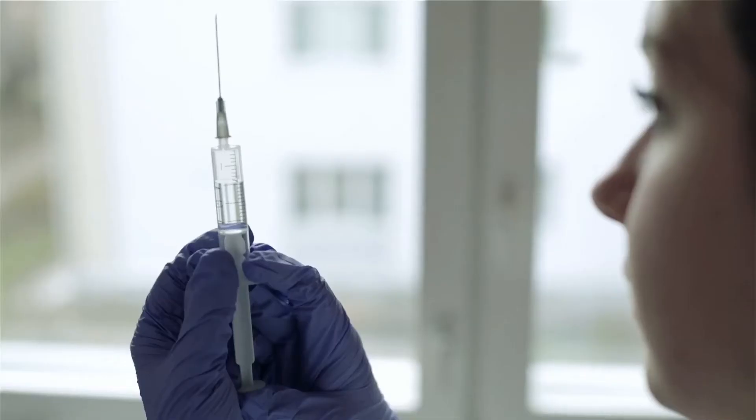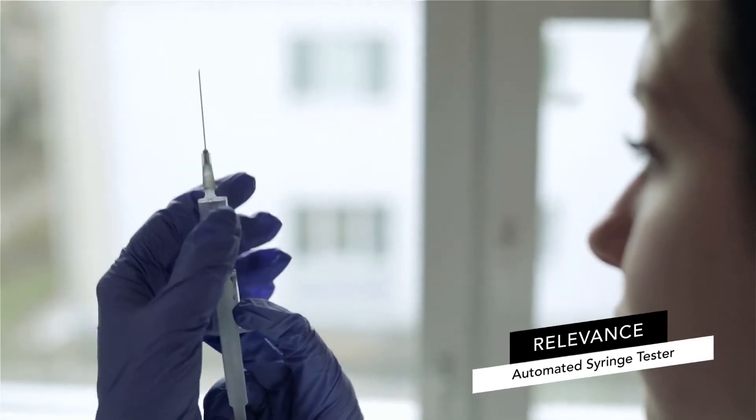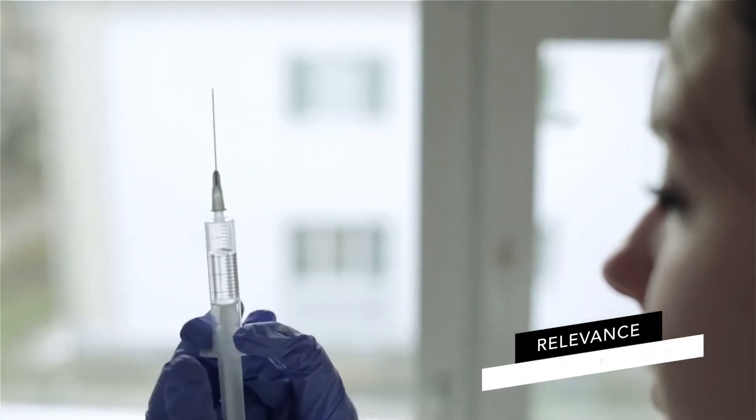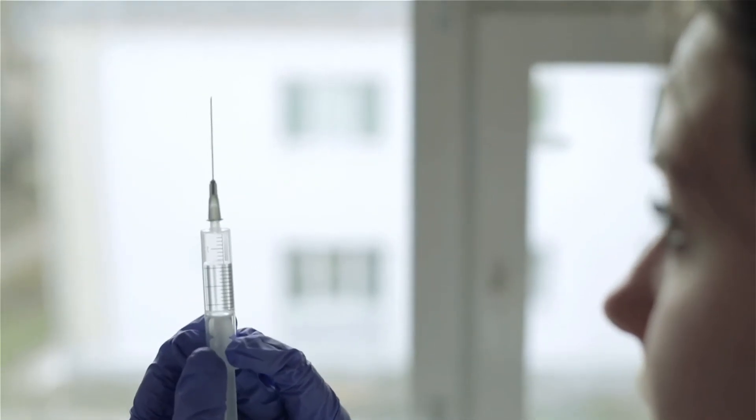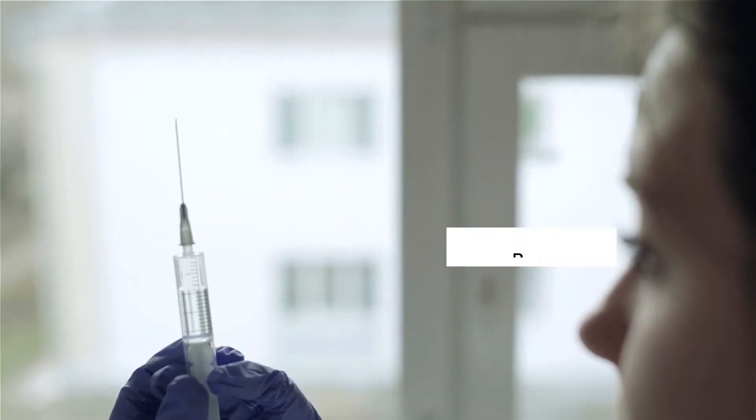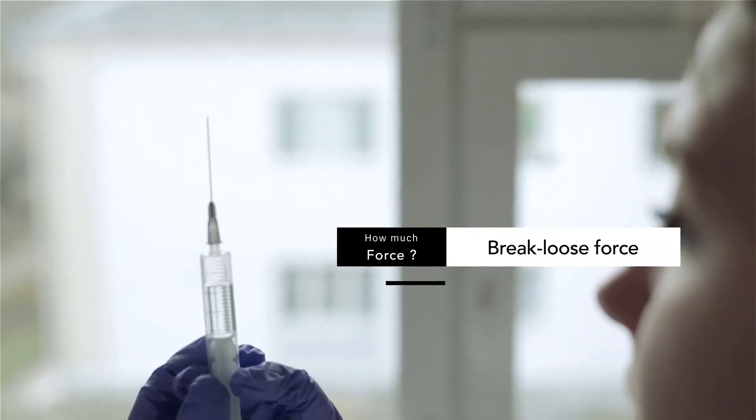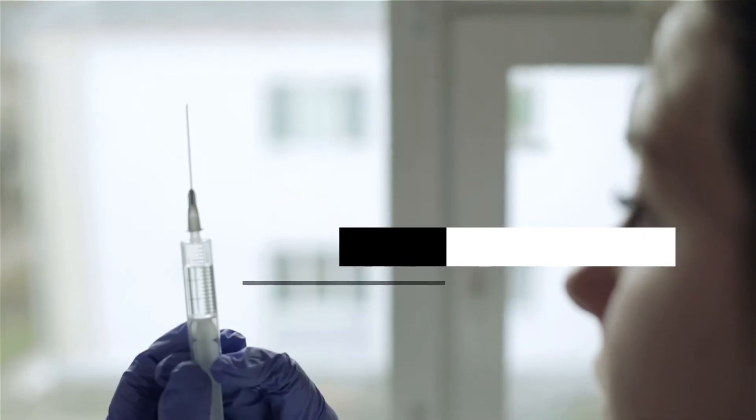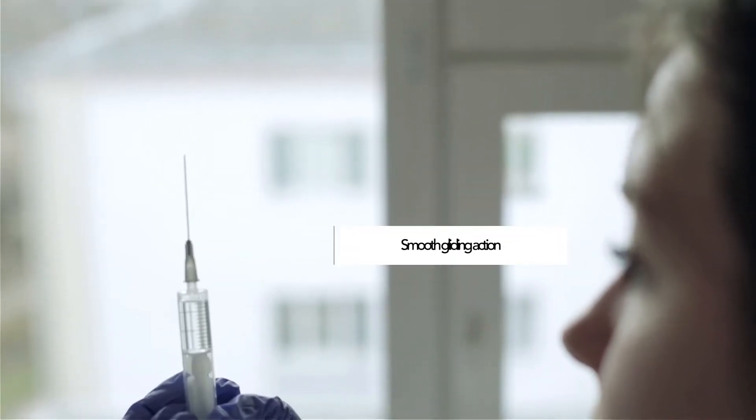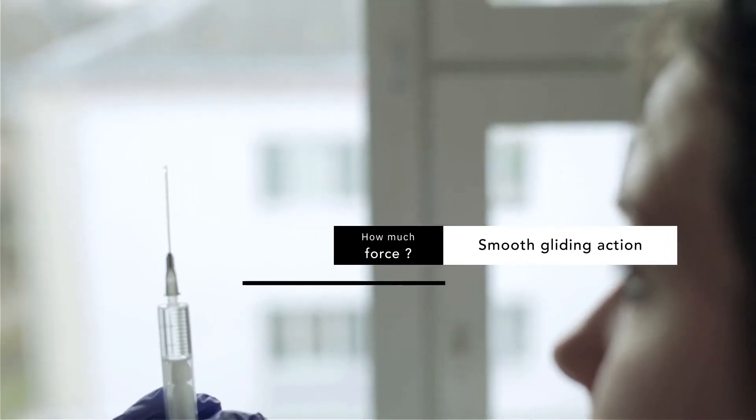Checking the performance and functionality of a syringe is critical with physical testing being high on the list. How much break-loose force does it take to initiate movement of the plunger? Once the plunger is moving, does it have a smooth gliding action?